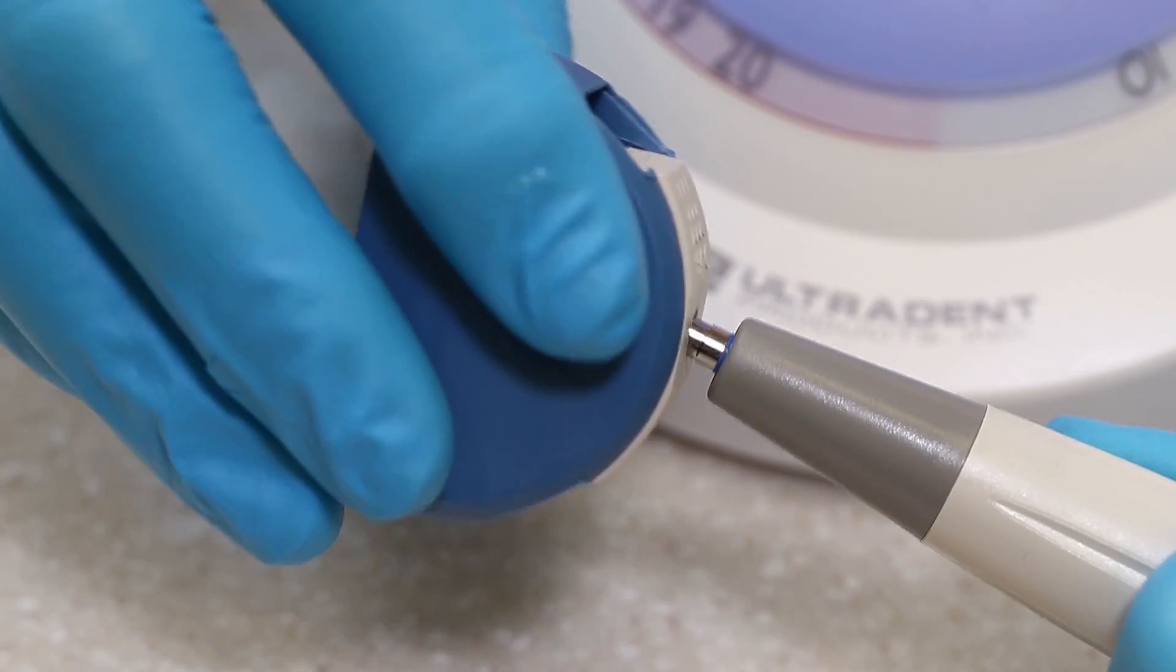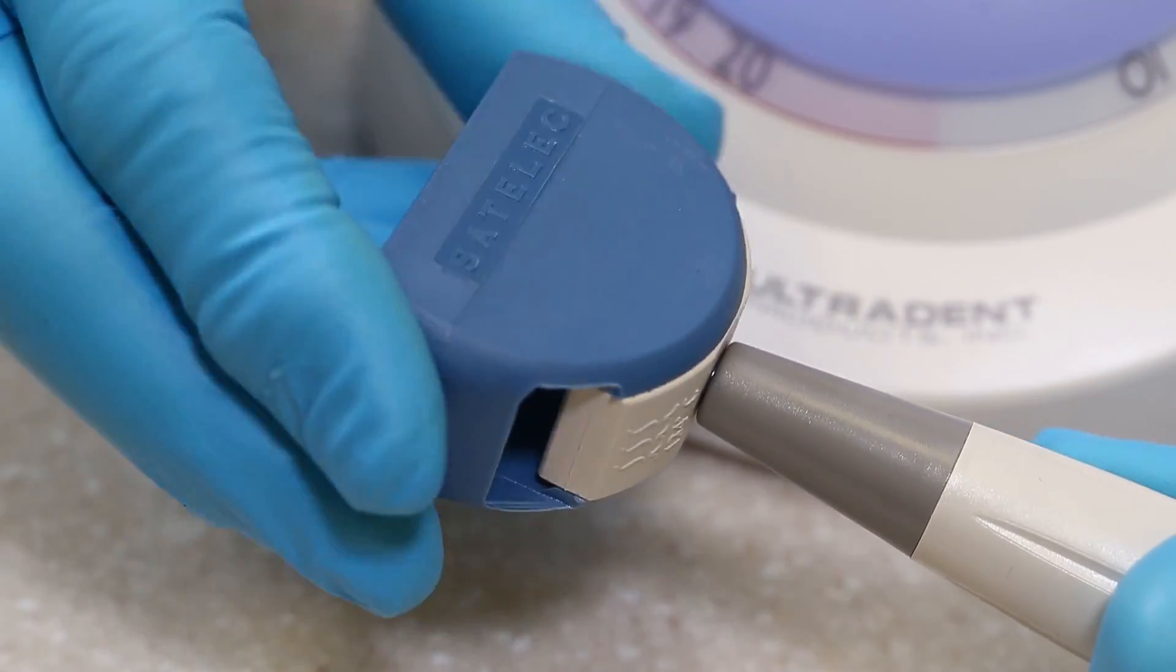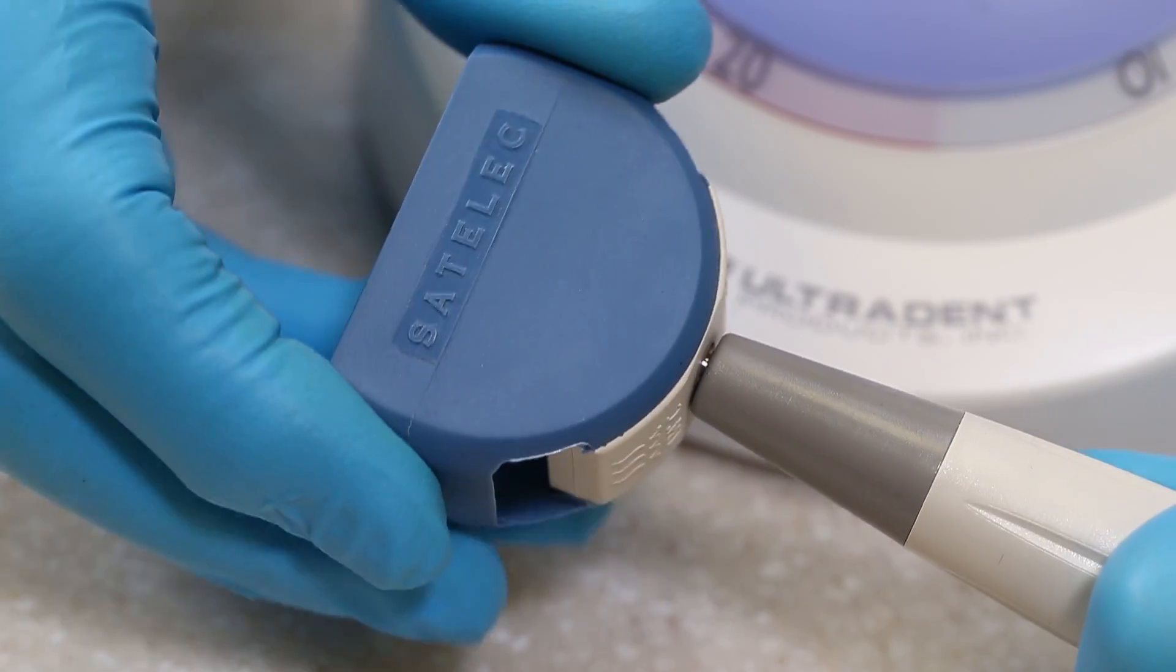If your ultrasonic tip is not vibrating, check to see if the tip is loose. If it is loose, tighten the tip with the tip wrench.